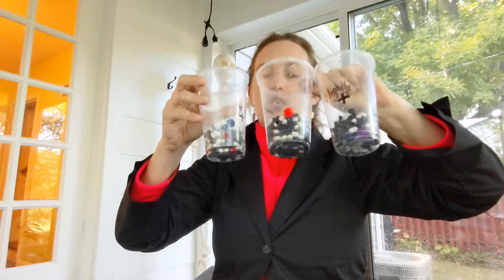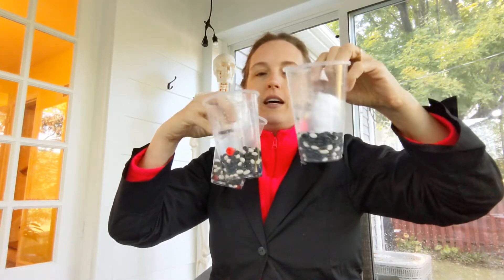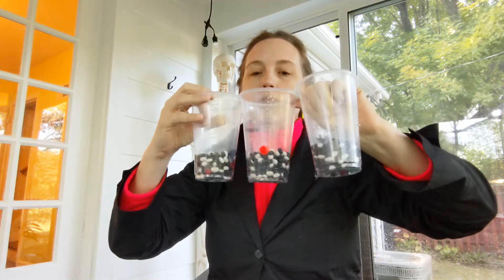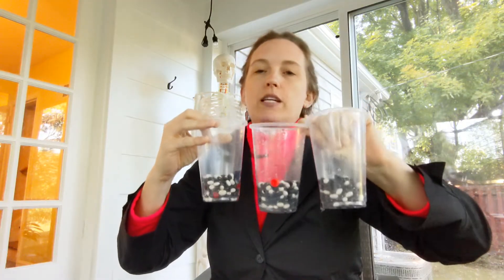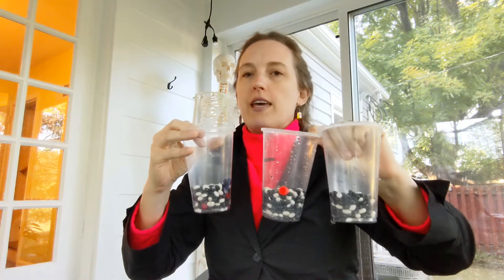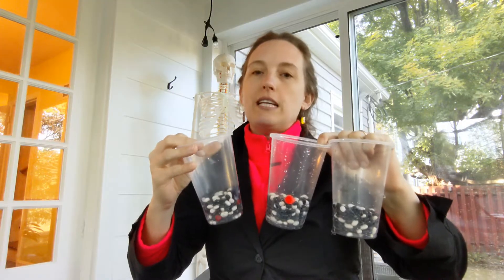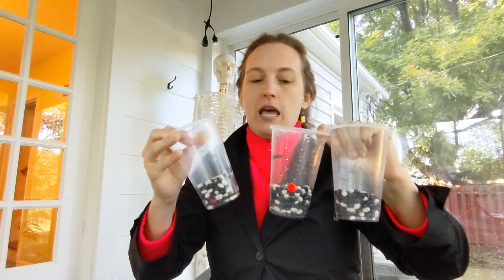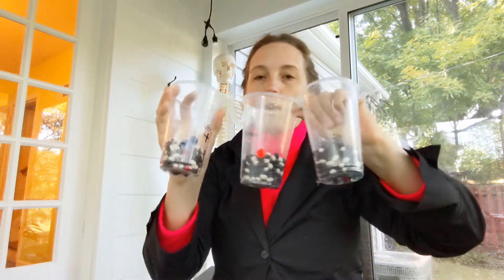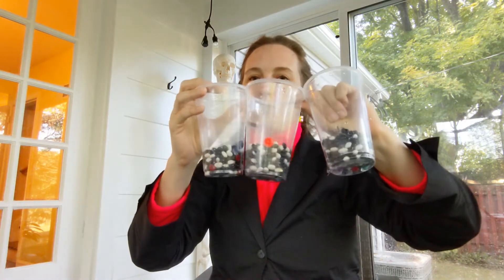I'm going to be modeling three different patients. This represents the cerebrospinal fluid of three different patients who we think may have meningitis. ELISA tests can be done on urine or blood for certain things, but in the case of meningitis — because it's a nervous system infection — you actually need cerebrospinal fluid. ELISA tests use small plastic wells; I'm using large plastic cups to represent those wells. Each patient has had their cerebrospinal fluid added to their well.